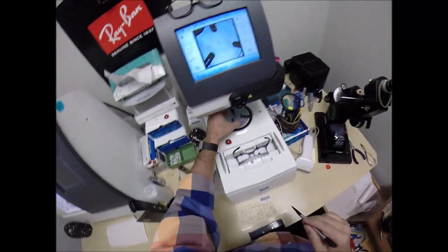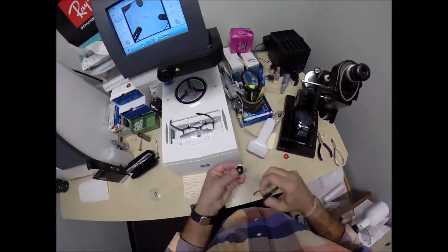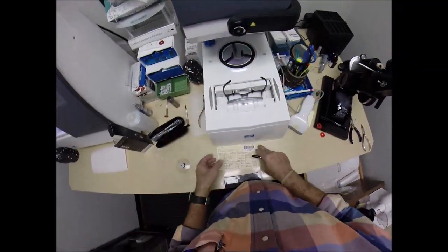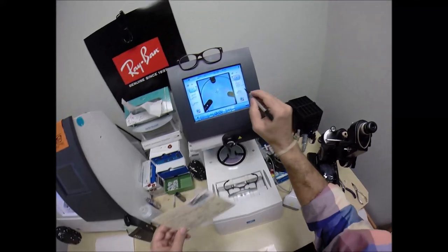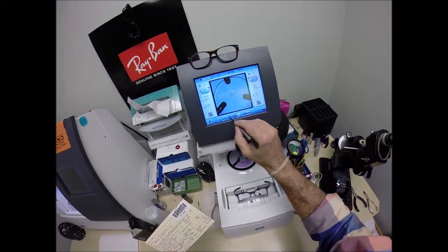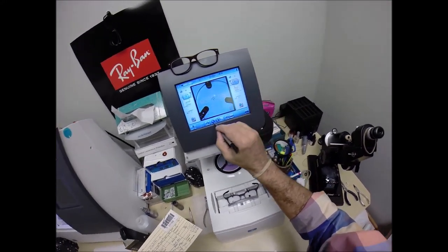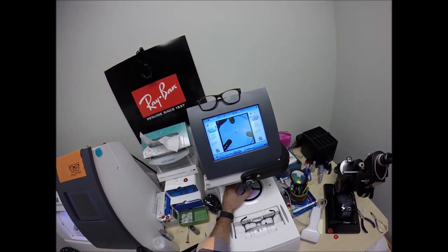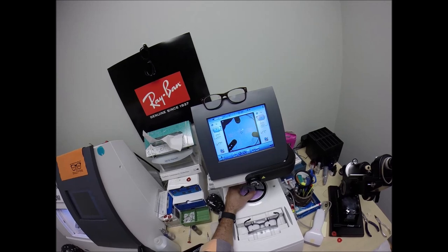We're going to do the same thing for the lens that ain't right. Pull that away. Line up the magnet there. Oh, come on, get in there. Get in there. Your pupillary distance is 32. We're going to drop down and hit the minus button a few times. Go down in half millimeter increments until we're at 32. Same optical center height.